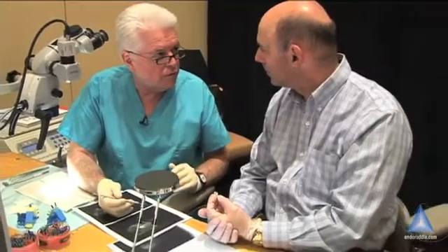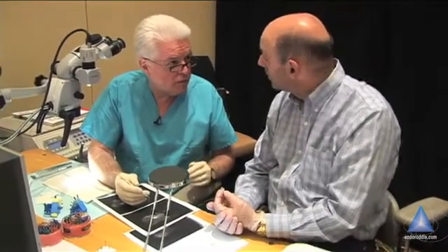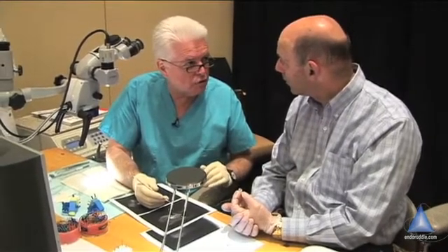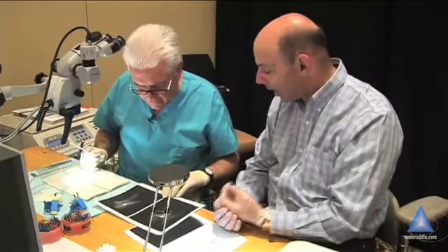And then all of a sudden you're around it, and you have to figure out if you can continue to shape, then maybe fit a cone and pack it — entombing the instrument inside the obturation material. So it's not removed; you're just able to get the length. If there was a lesion, that might have been important.